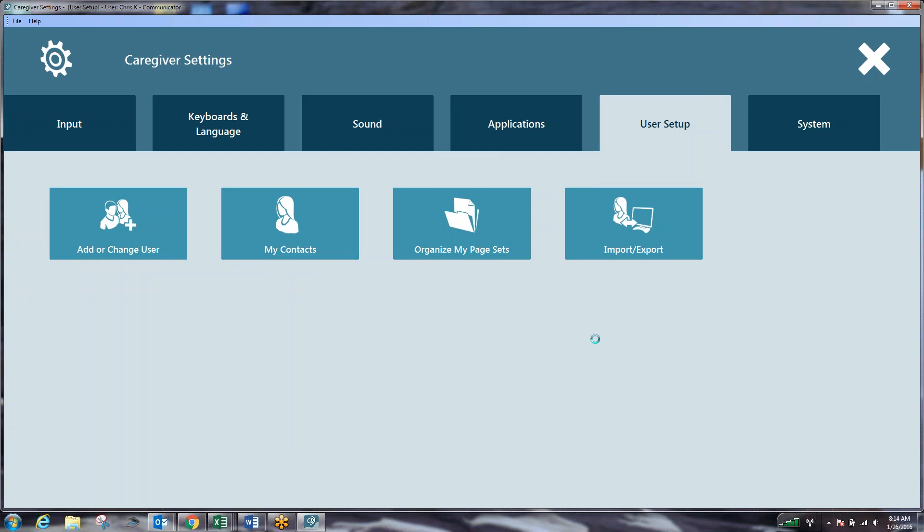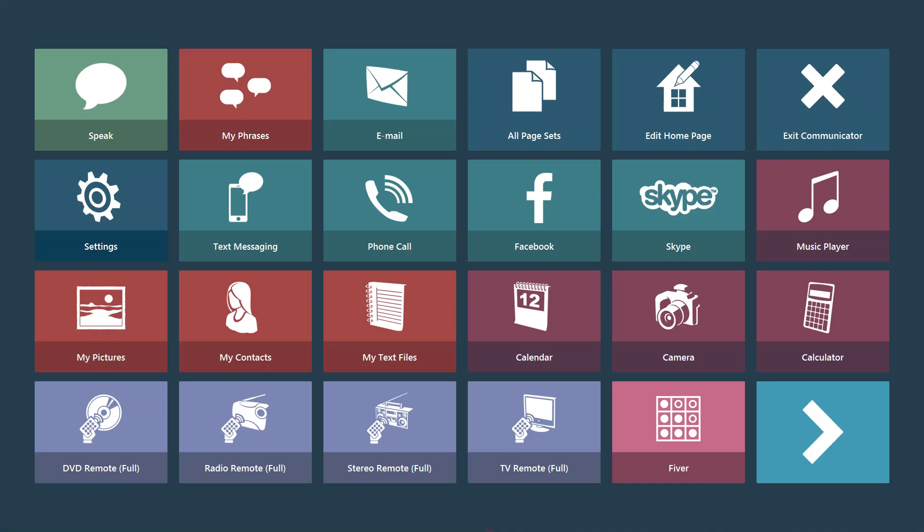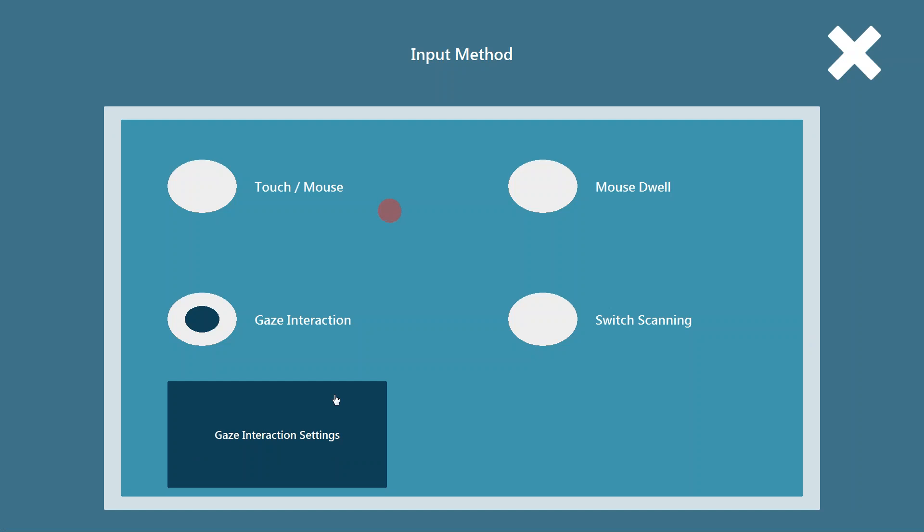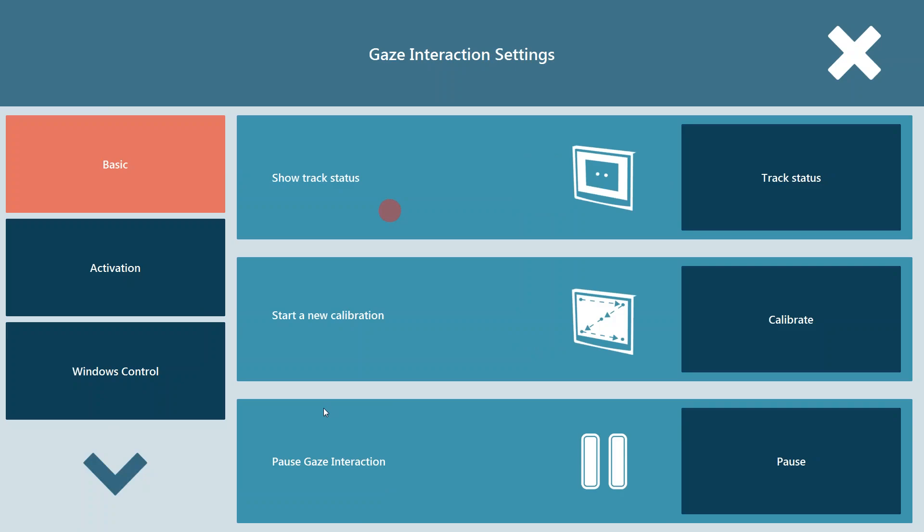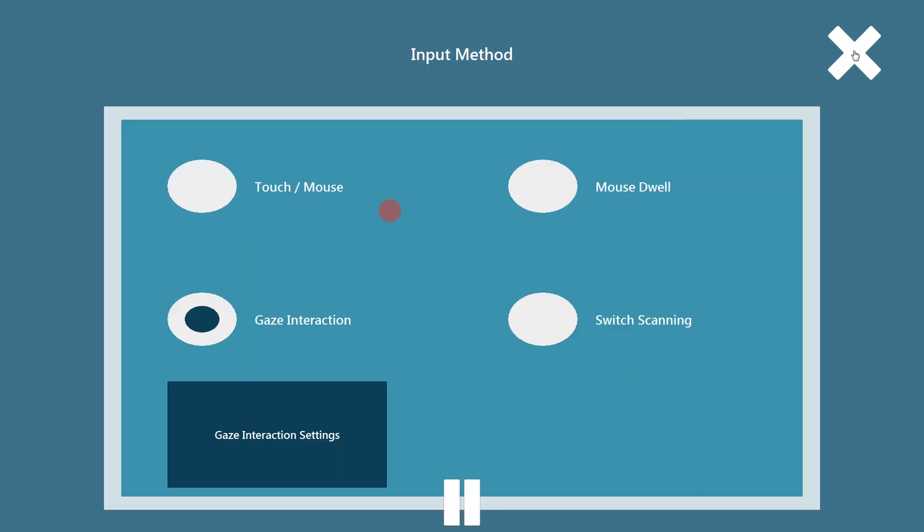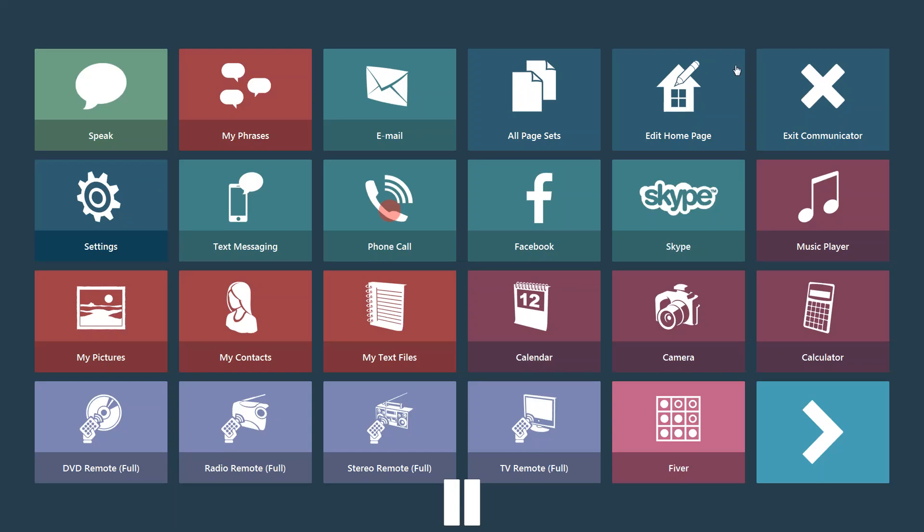It'll take a few seconds to load up a default homepage for us. As you can see, I have Gaze Interaction turned on for my computer and it's already picking up my eyes. So I am going to go in there and I'm going to disable that for the time being or put it on pause. So what I'm going to do now is step out of the system and show you how to better calibrate for the eyes.